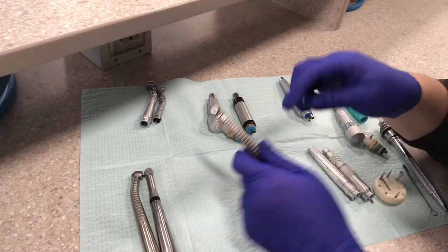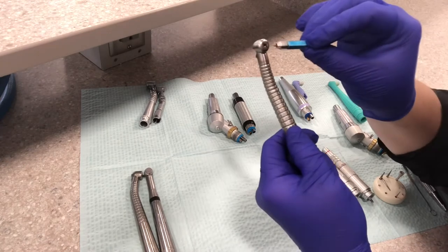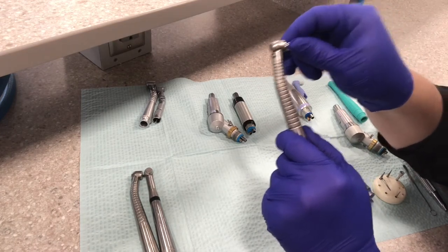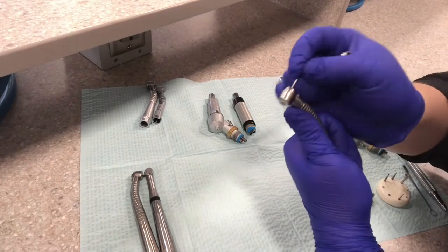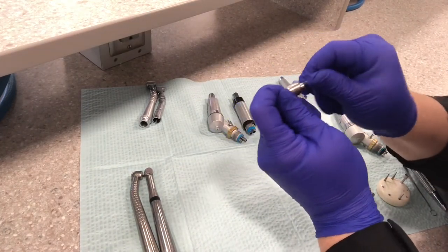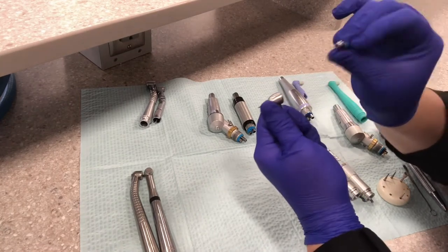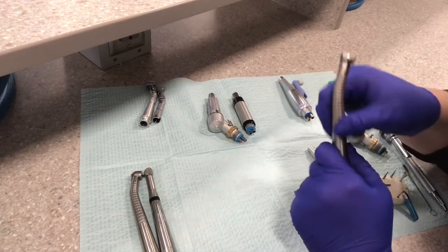The last one, not used very commonly, is called the wrench style. The back of it has three little holes that line up with the wrench we use here. You have to loosen it, line up the wrench with those holes, and then quarter-turn it to lock the burr in place — and the opposite when you take the burr out. Place the burr in, hang on to it as you tighten that down, and give it a pull to make sure it's good. It's a lot more time-consuming for the doctor to use this little wrench to change burrs every time, so they've kind of done away with this style, but you still get to learn it.